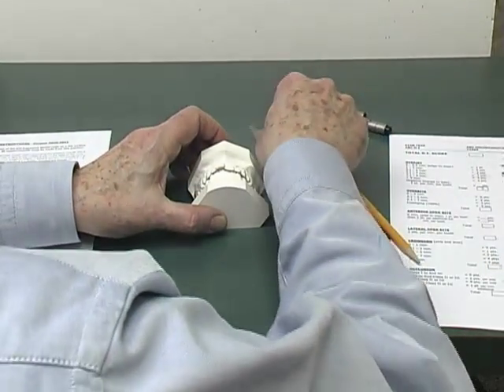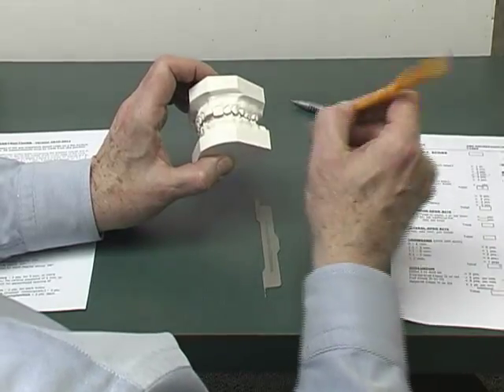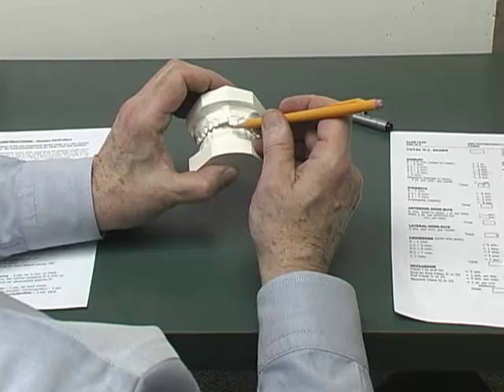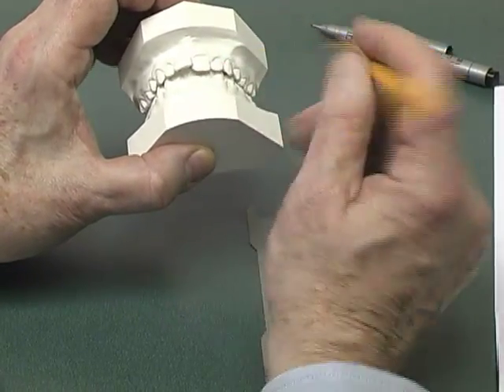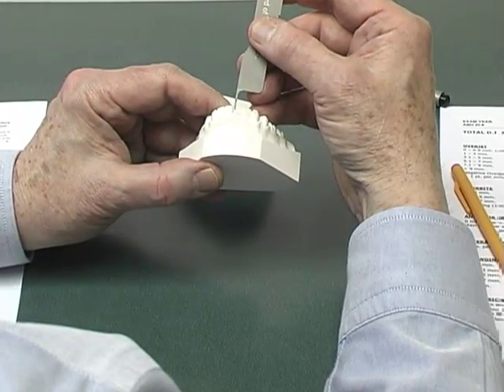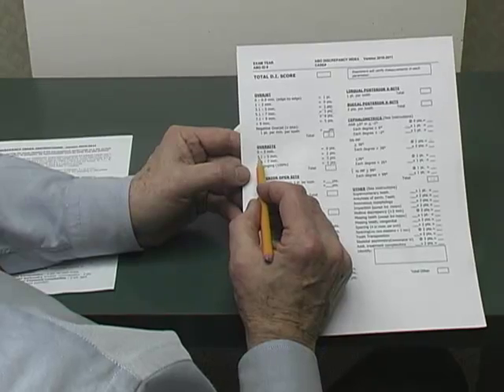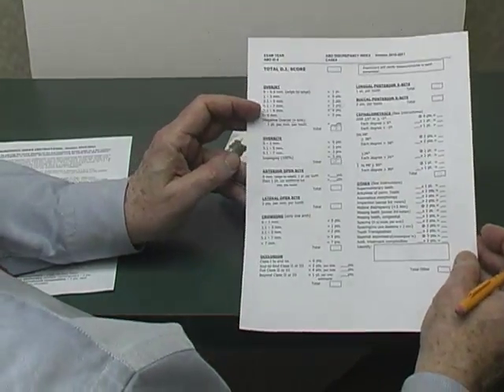I'm going to use this same set of casts. The left centrals have the deepest overbite of the incisor teeth. I will take the half millimeter diameter lead mechanical pencil and place it to make a mark that relates to the edge, then separate the casts. You can see the light marking on the tooth. I take the ABO tool and use the millimeter marking to read the distance — I measure 4 millimeters. On the DI form, 4 millimeters falls between 3.1 and 5 millimeters, which equals two points.